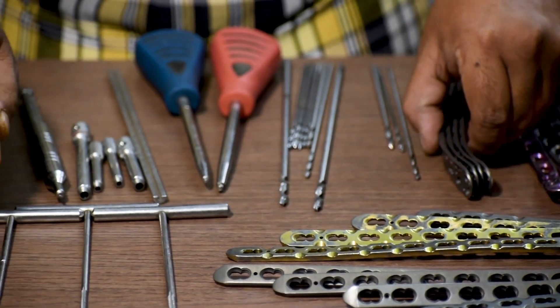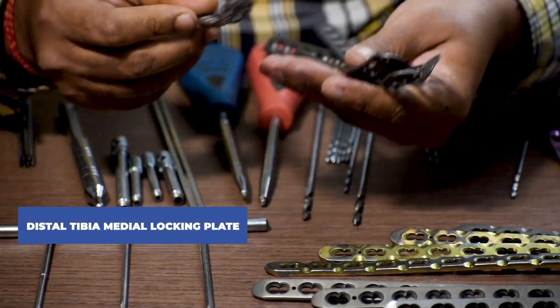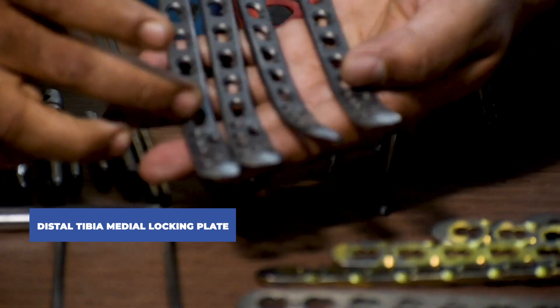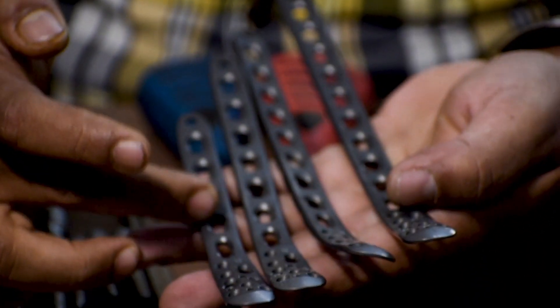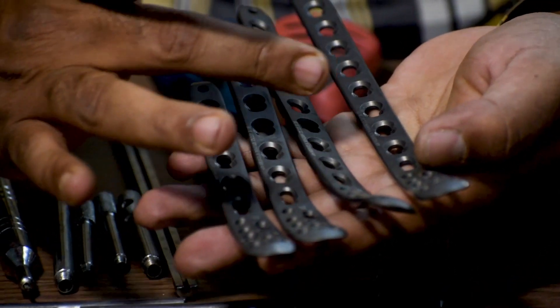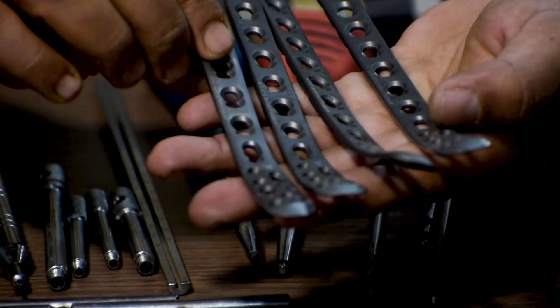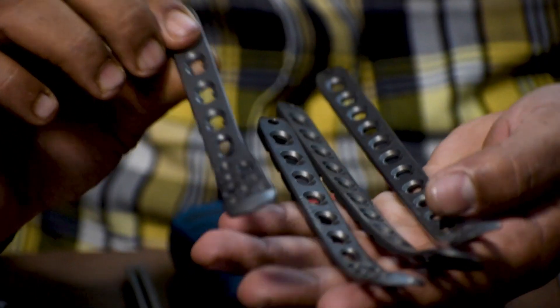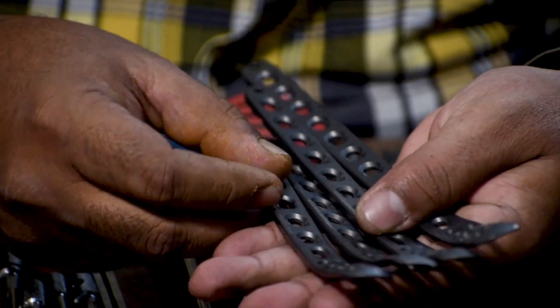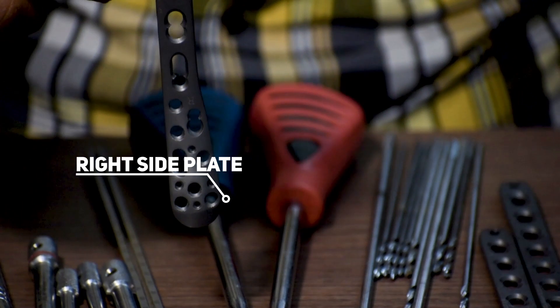If there is a fracture in the distal end of the tibia, in general a distal tibia medial locking plate is used. It is available in various lengths ranging from four holes up to 12 holes — four holes, six holes, eight holes, ten holes. In case of a longer fracture, a 12-hole plate can be used. This is a side-specific plate, available in both left and right side.